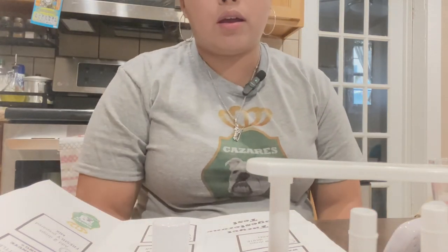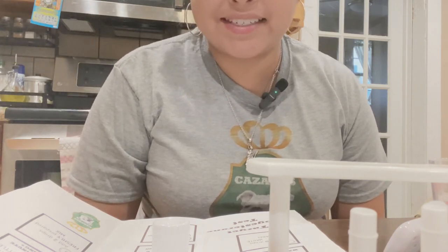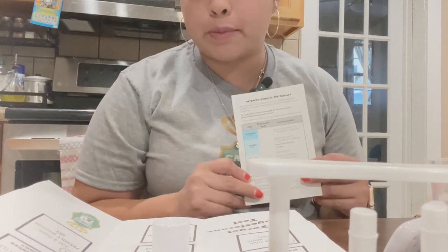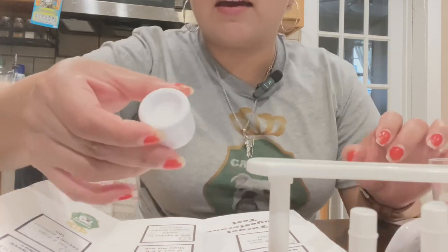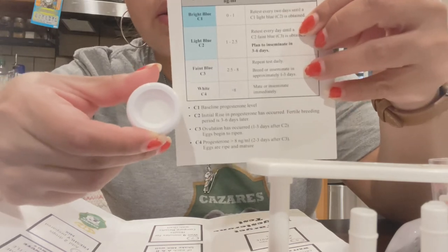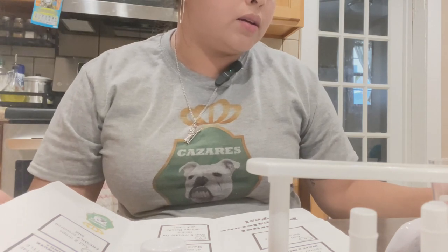We have only a few seconds left and I don't see any colors — that's exciting news. Yesterday she was light blue, so I'm surprised she's already at white. The nine minutes are up and you can see there is absolutely no color on it. That means she is at the white and should be inseminated immediately. I'll let you know what happens — thank you!